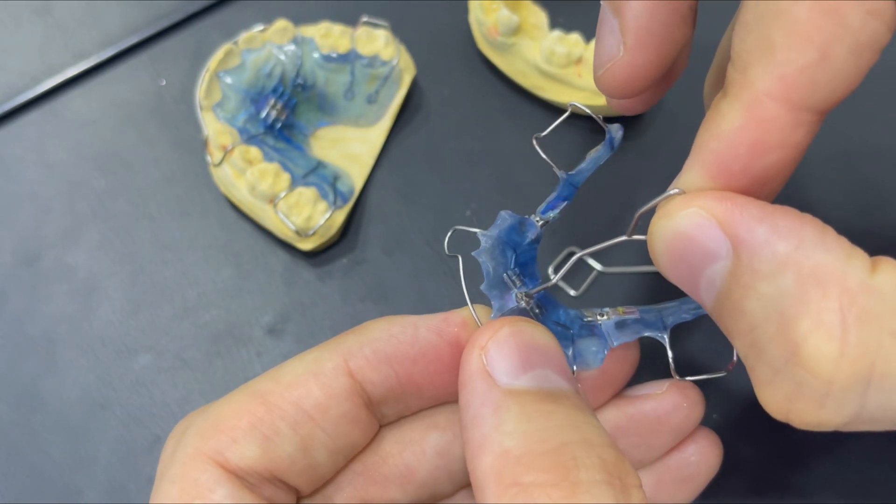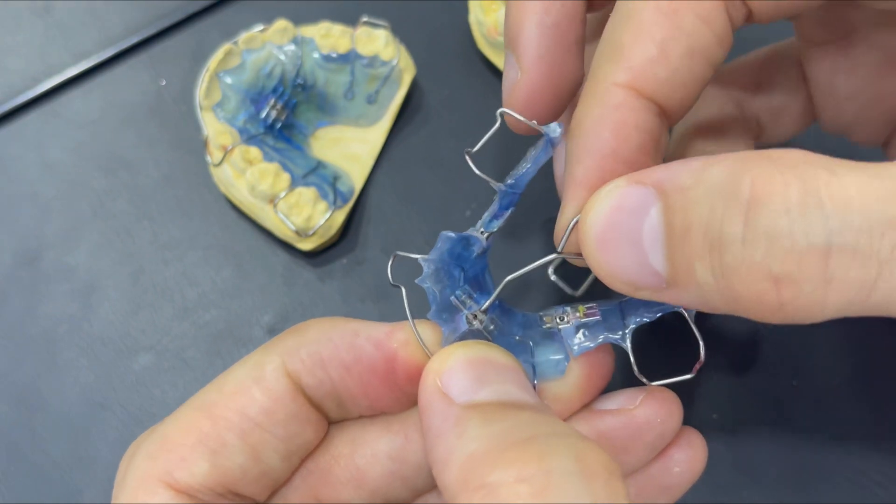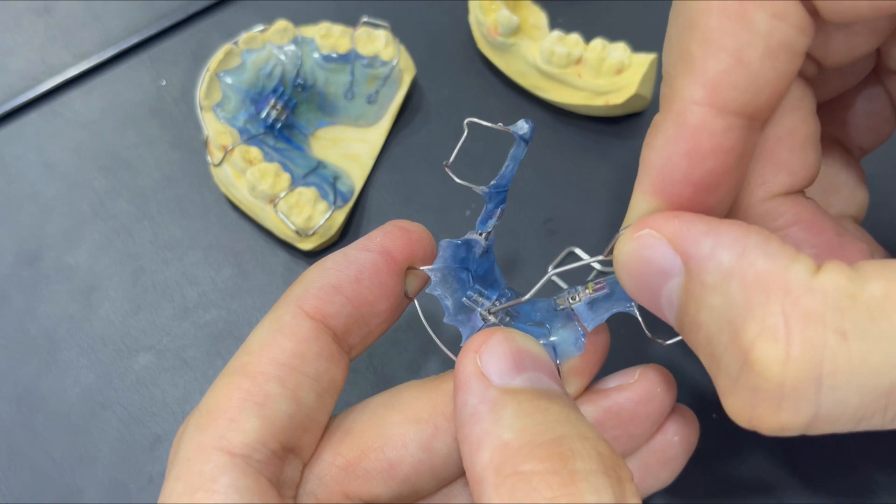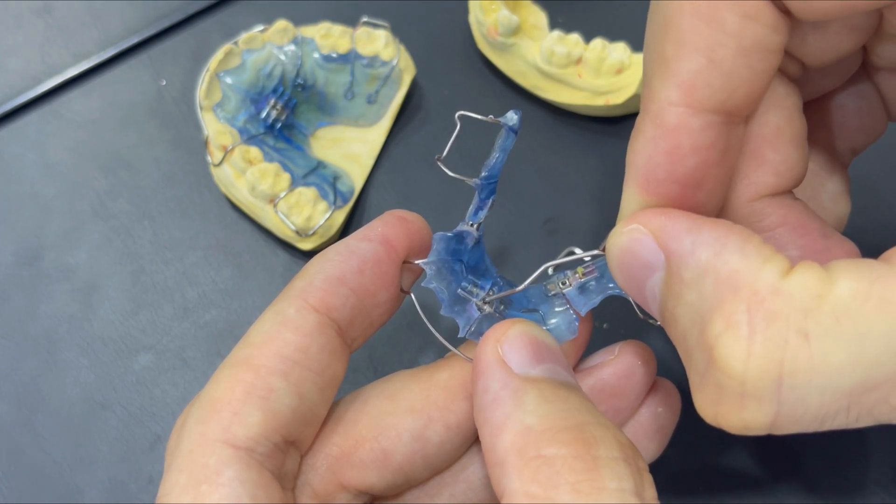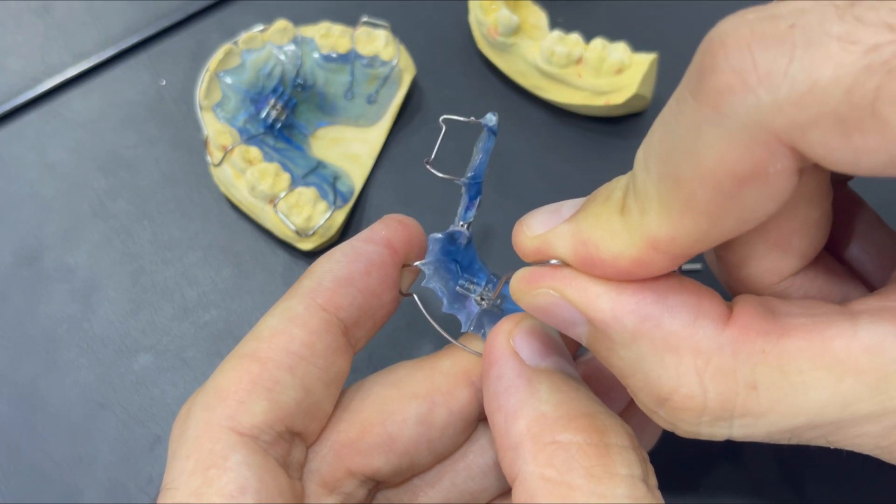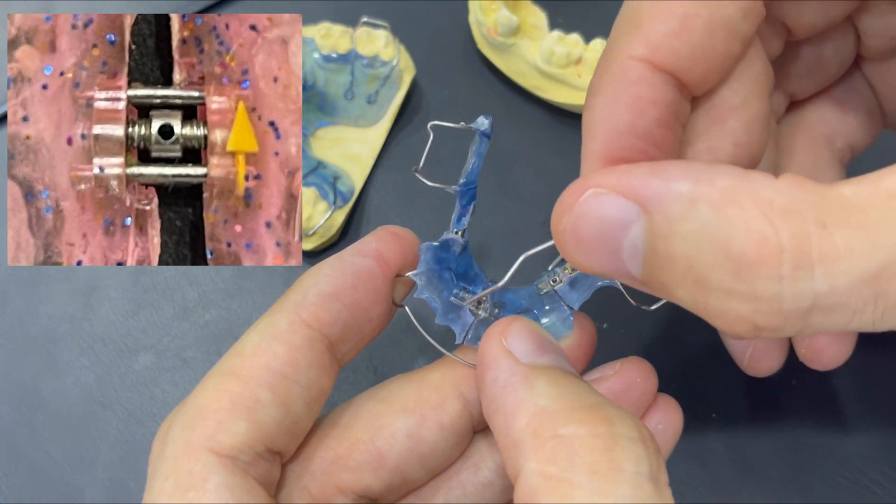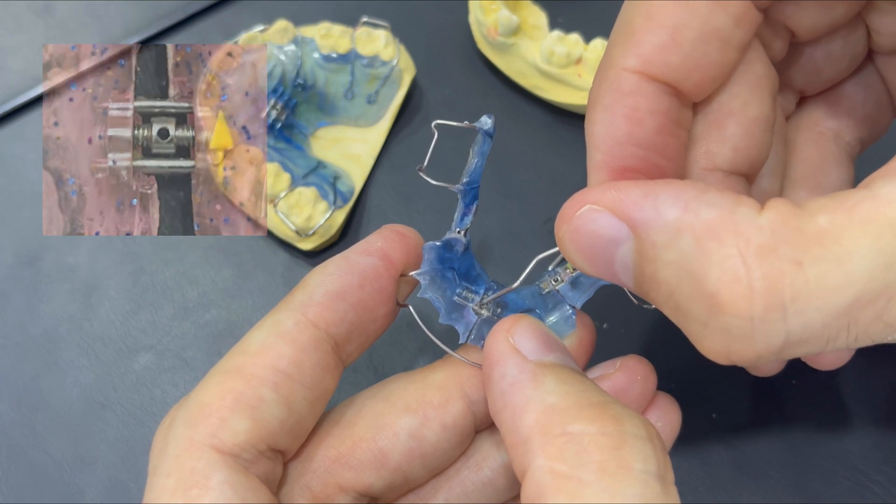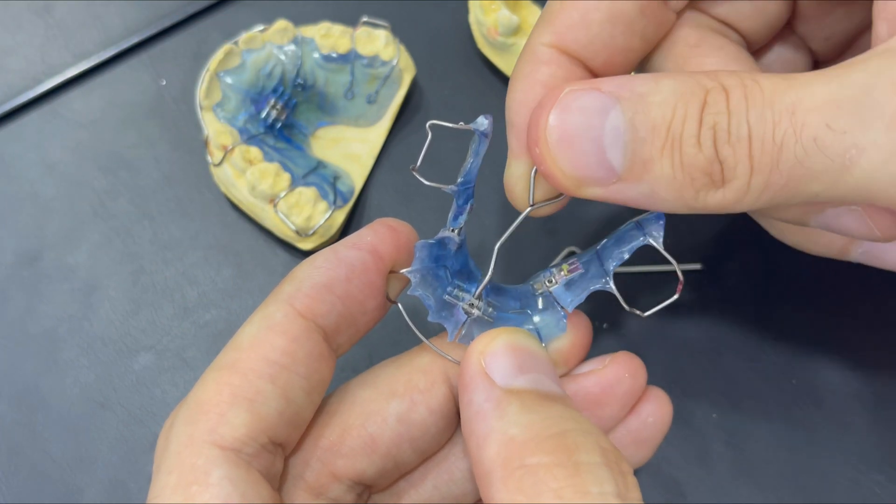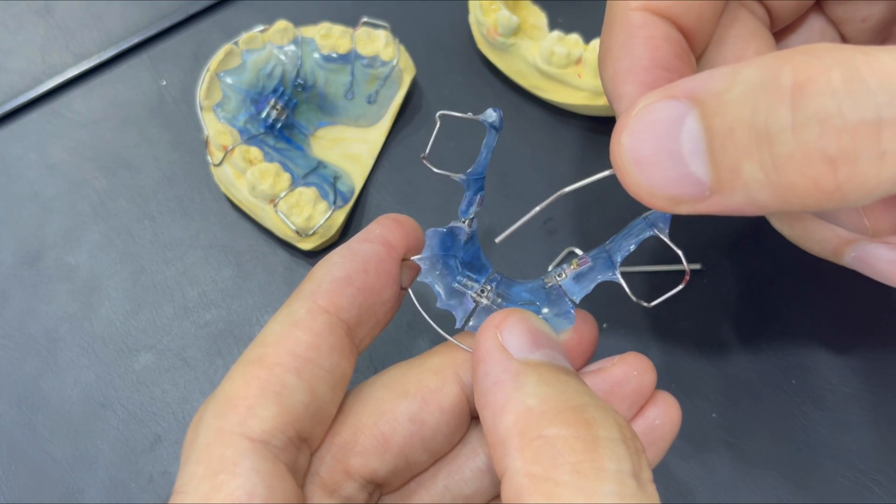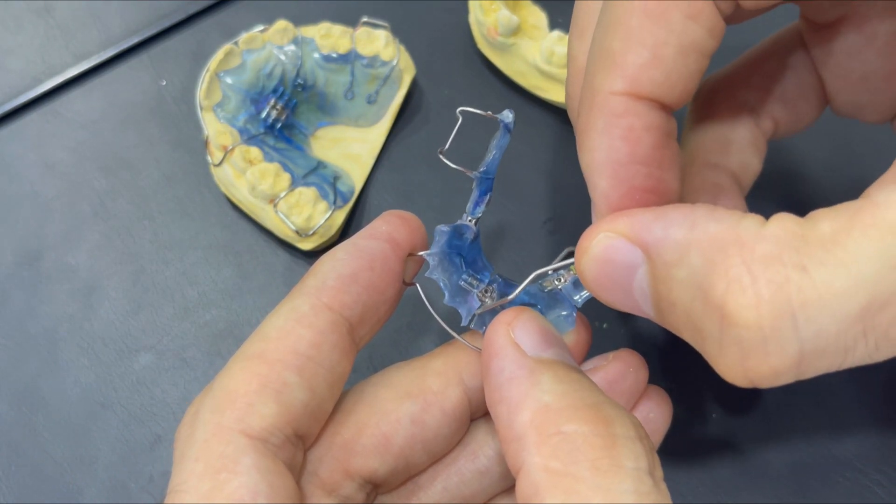Let's do the horizontal expansion. For this device, we are doing one turn for each screw. This is one turn, and this is the second turn after seeing the other hole. We made two turns and we see as well the device being split. That means the space is being created.